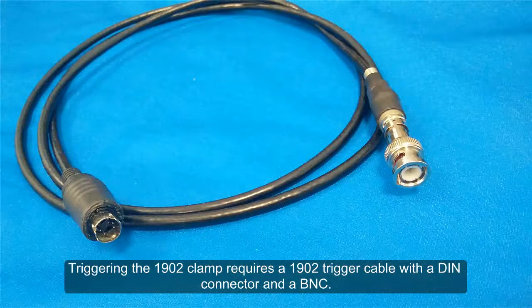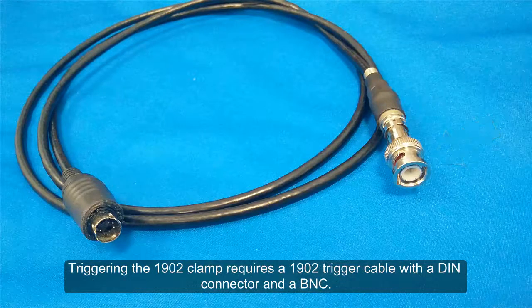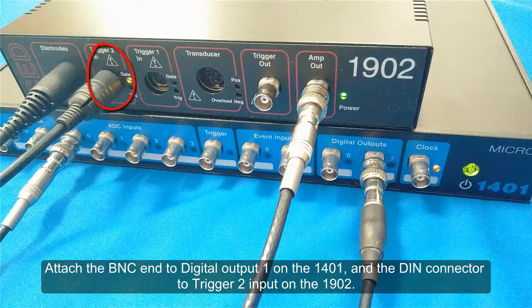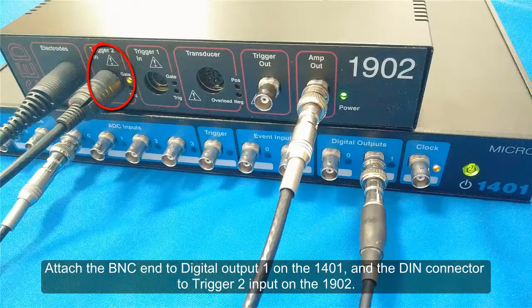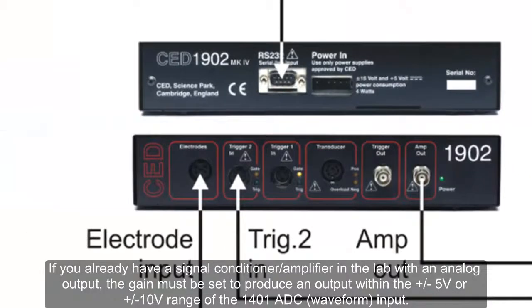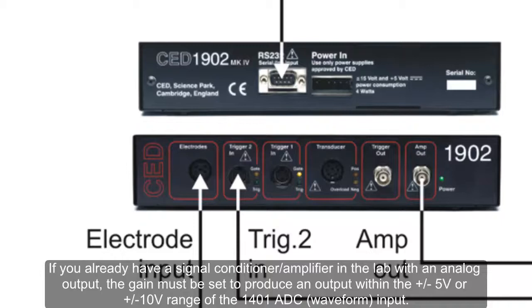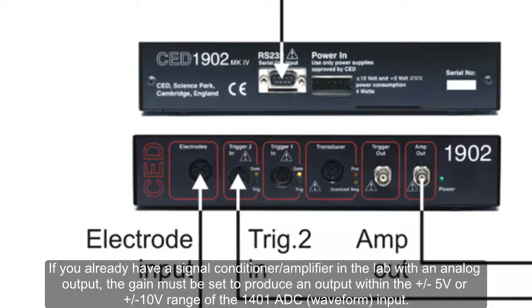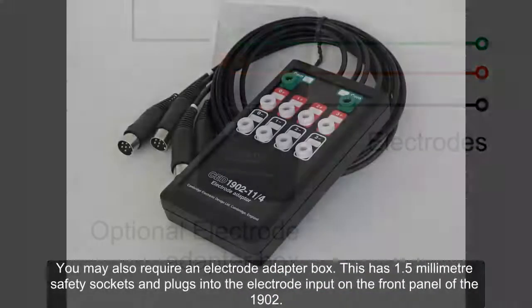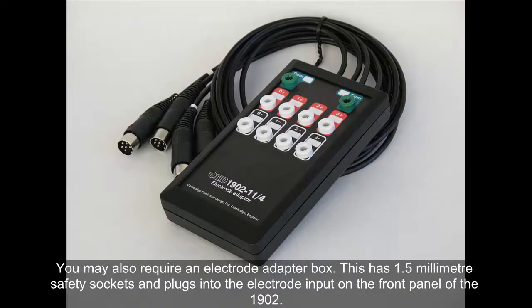Triggering the 1902 clamp requires a 1902 trigger cable with a DIN connector and a BNC. Attach the BNC end to Digital Output 1 on the 1401 and the DIN connector to Trigger 2 input on the 1902. If you already have a signal conditioner or amplifier in the lab with an analogue output, the gain must be set to produce an output within the ±5V or ±10V range of the 1401 ADC waveform input. You may also require an electrode adapter box, which has 1.5mm safety sockets and plugs into the electrode input on the front panel of the 1902.